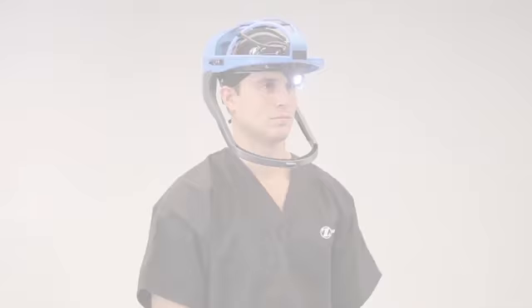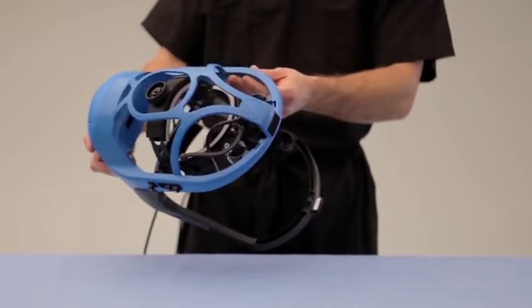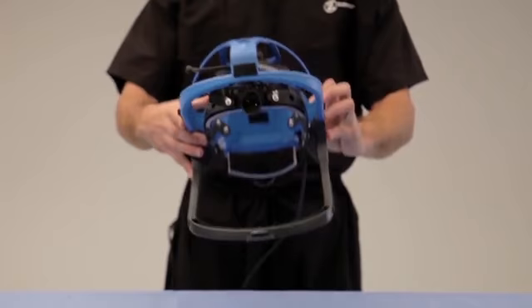To demonstrate the donning procedure, we will use the Zimmer Total Shield Advanced Surgical Helmet with LED lighting. Prior to each use, inspect the helmet for any damage. Do not use the helmet if any damage is detected. If the inspection is complete and no damage is detected, begin donning procedures.